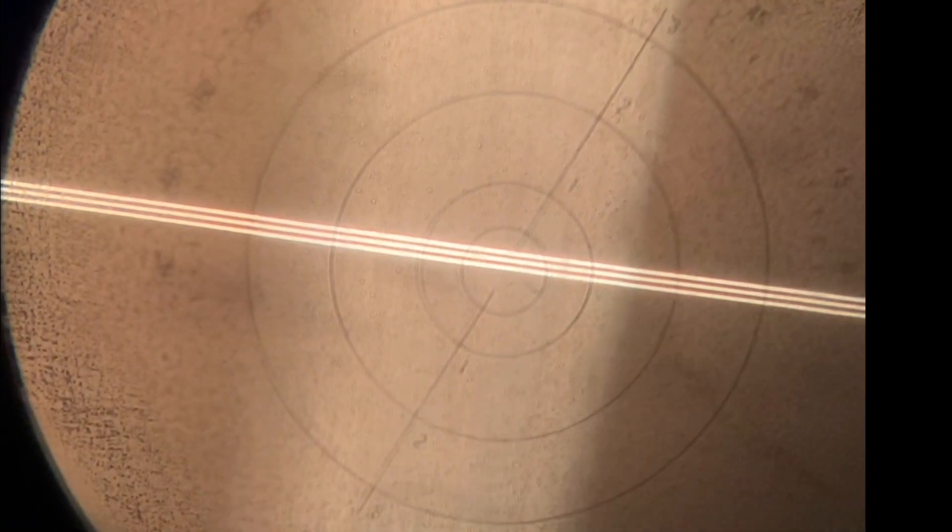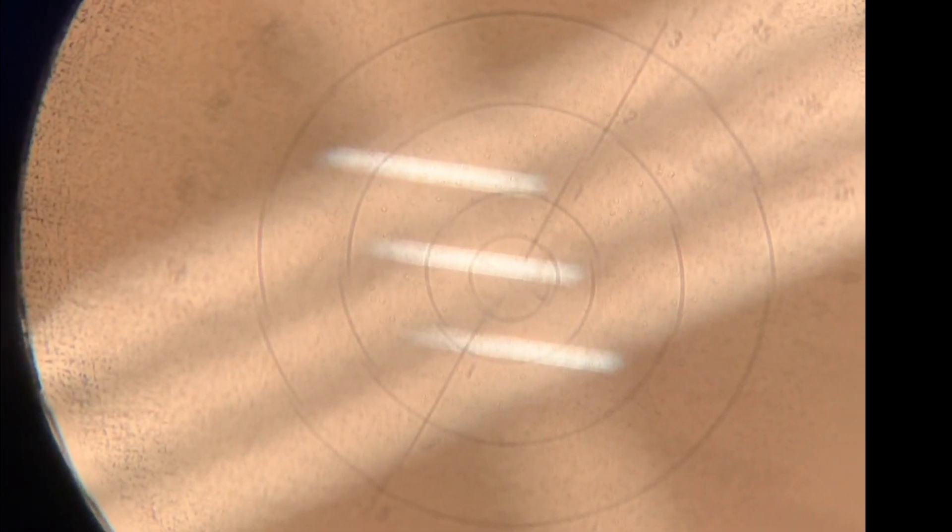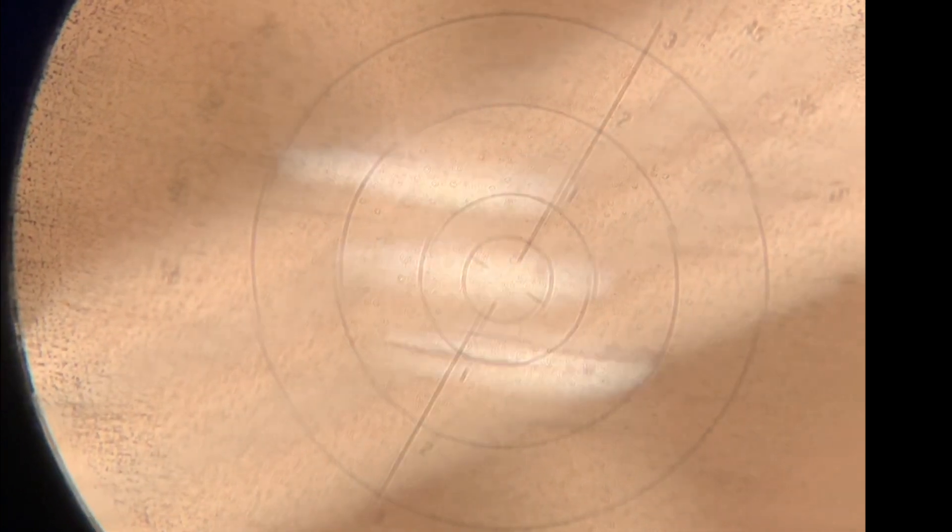When a lens has a very high degree of cylinder correction, you'll notice that the axis looks much more off when we are not aligned and focused.